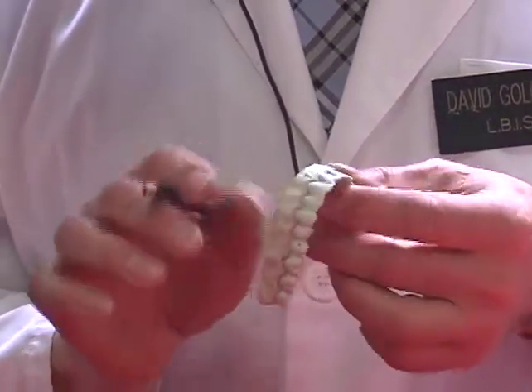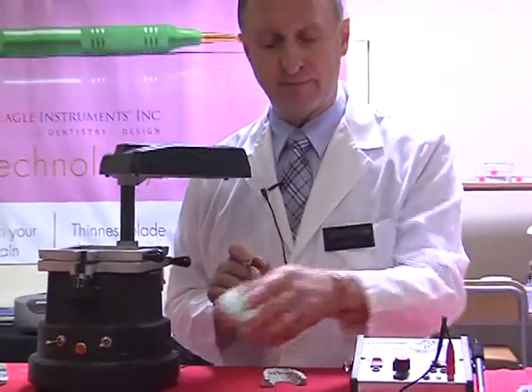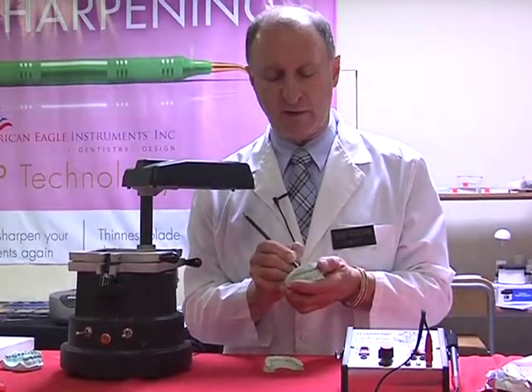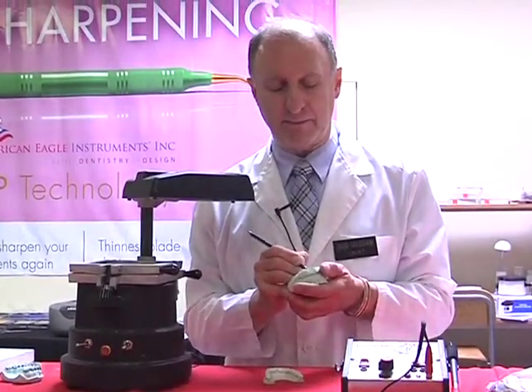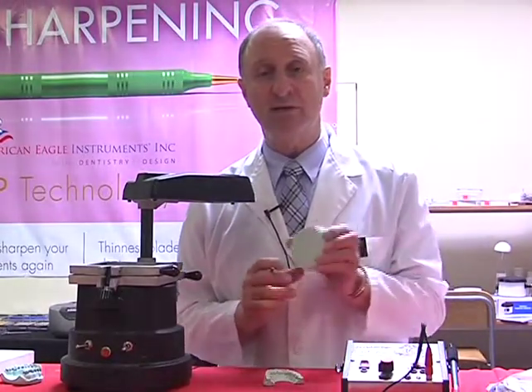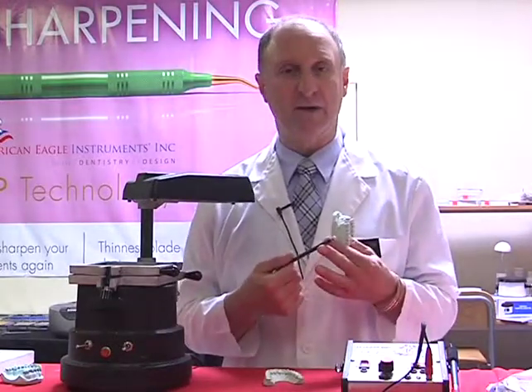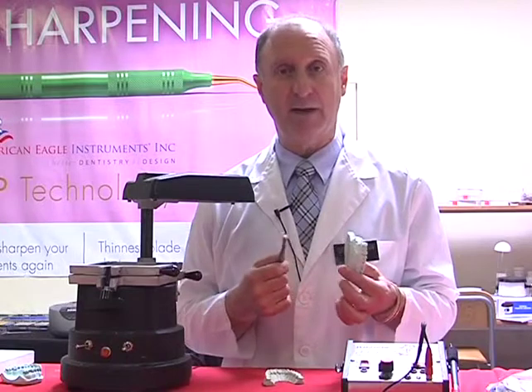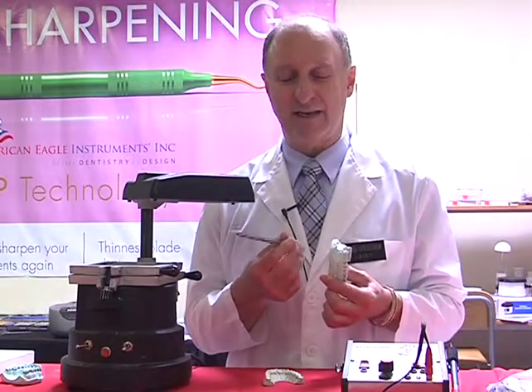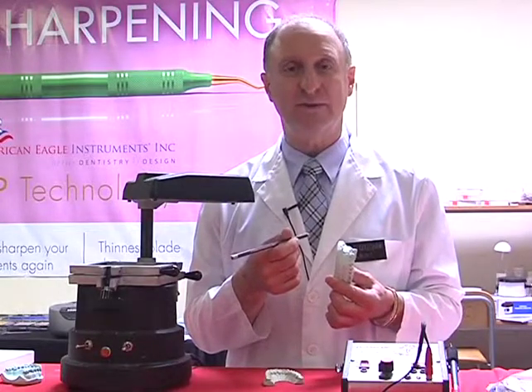I can do other things with the indelible pencil, such as write the patient's name on the model. So once I've written Mrs. Smith's information, I put this under a tap, under water, and it stains the surface. They call it ink in the bottle, so it will permanently mark. These pencils run normally around $3 a piece, and this one's a new one I've just opened up, but they normally last about 2 to 3 years.